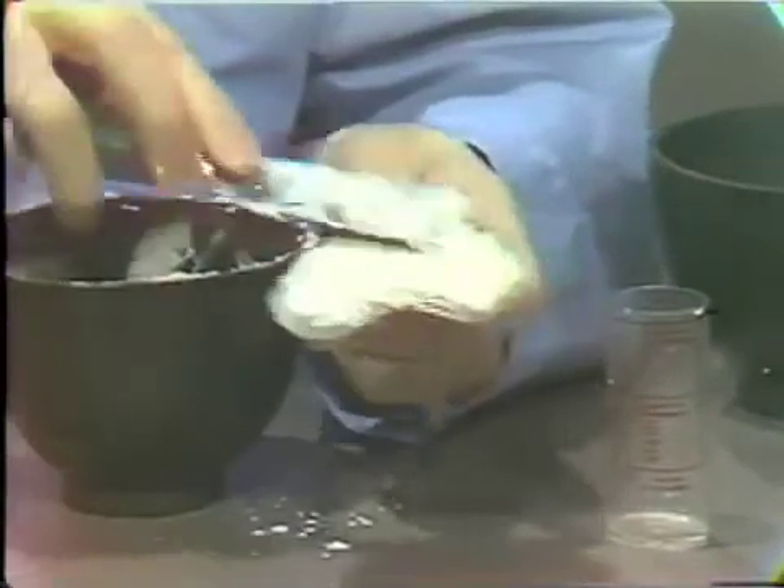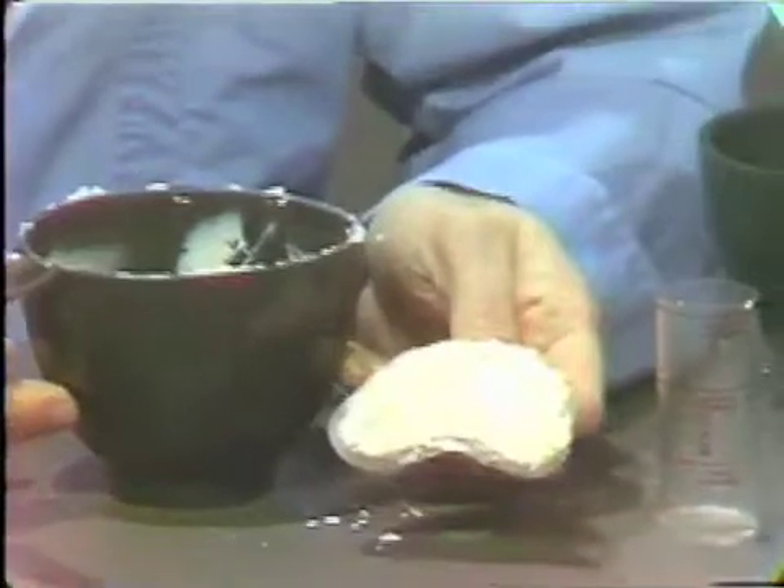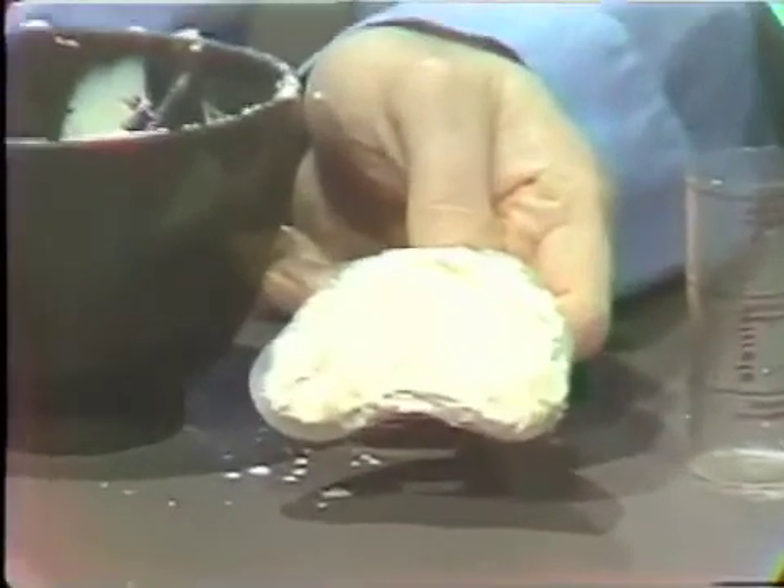You try to have the bulk of the material, or the larger bulk of the material, in the anterior region, and not have a lot of excess material in the posterior area. At this point, you are ready to take the impression.